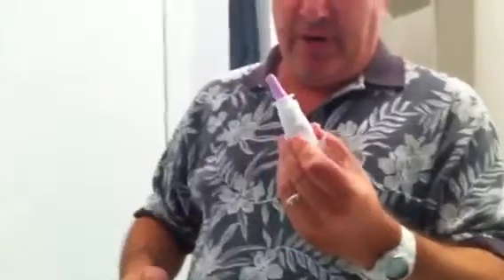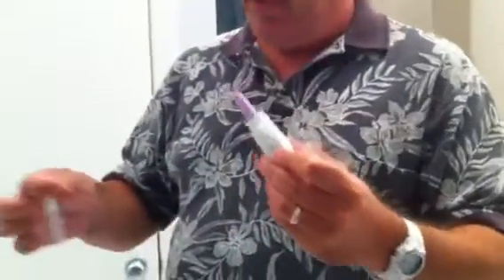What you need is a shot glass, a regular shot glass, your nasal spray — whichever brand of medication, whichever type of medication your doctor wants you to use.